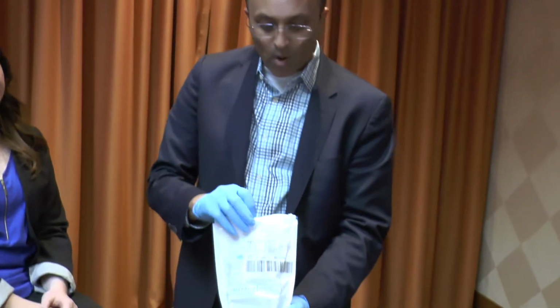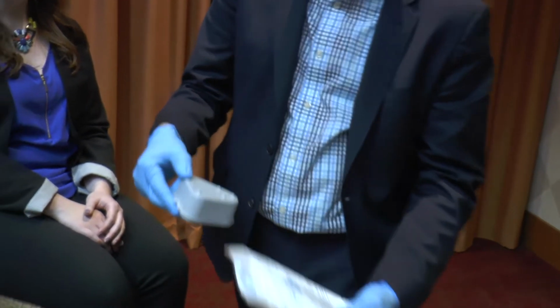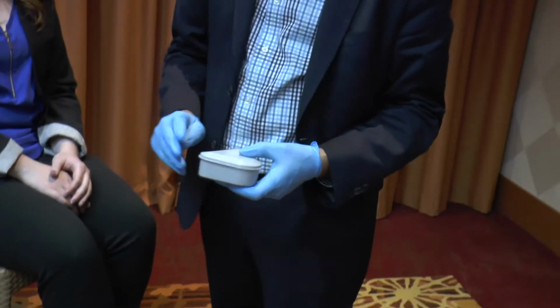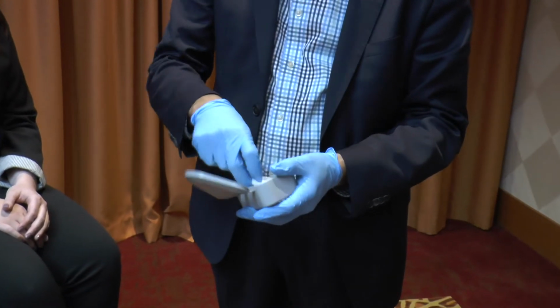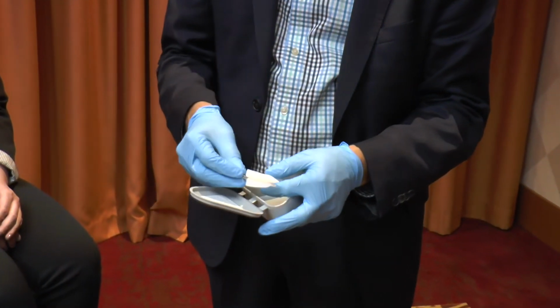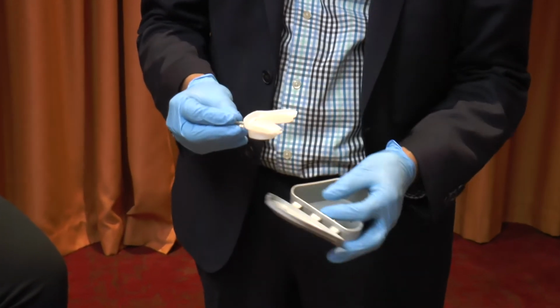So one way to mitigate that is to fabricate a trial device that they can actually go home with, wear it for a period of time, and as a result of wearing it, determine the outcomes and the benefits they may receive as well as their bed partner. Furthermore, you could even test them with this device to see if they were effective with the utilization of a trial device before you committed them to a custom device.